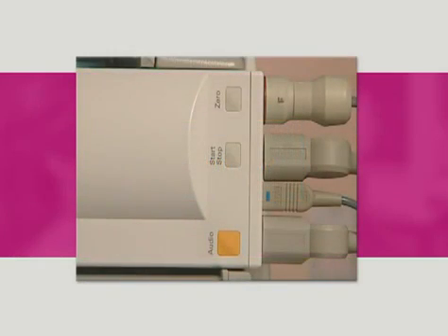Pop-up keys are task-related graphical keys that appear automatically on the monitor screen when required. For example, the confirm pop-up key appears only when you need to confirm a change. A hard key is a physical key on a monitoring device, such as the zero pressure key on the multi-measurement server or a setup key on a plug-in module.